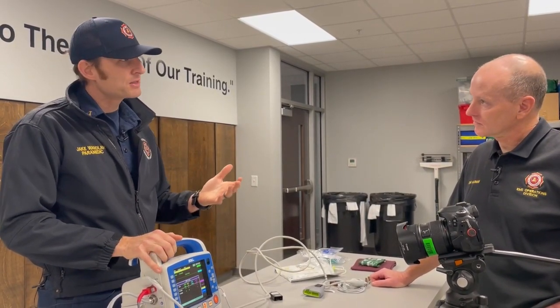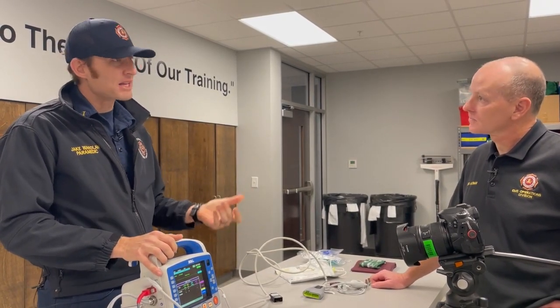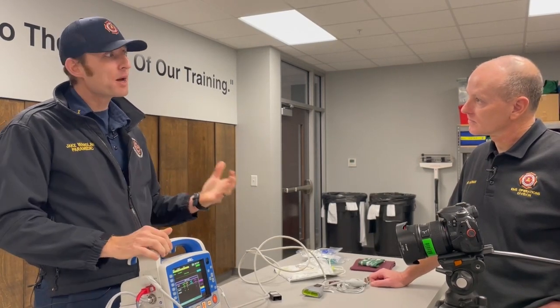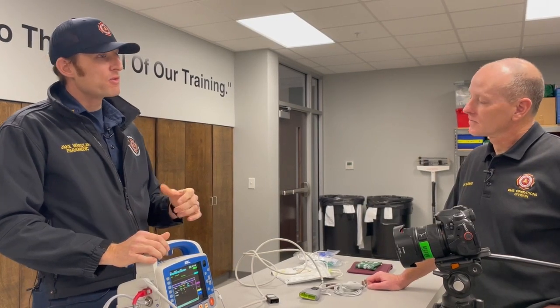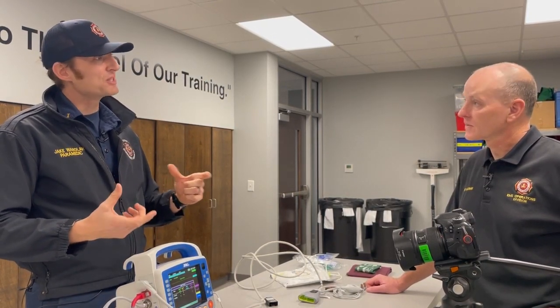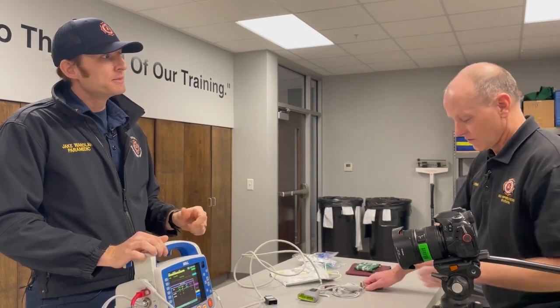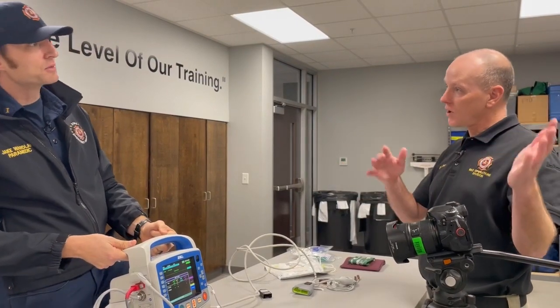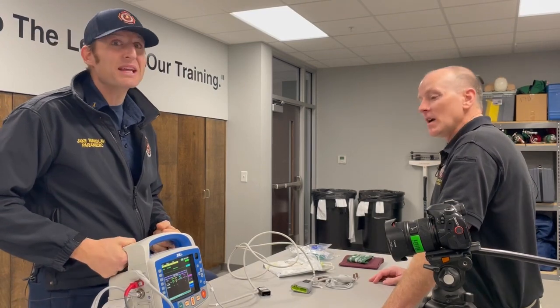It's perfect. The other benefit of it, if you're looking from a QA perspective, is that if you hit that button, it'll actually potentially take a photo of that moment. Again, that 12 seconds before, 12 seconds after, and when you upload it to your report, it'll actually capture it in your report. So if you've ever gone through Image Trend, gone through the monitor section and actually looked at images, if you don't hit that button, usually you just have maybe a 3-second snapshot. Correct. If you hit that camera, it's going to give you that full duration. We're talking 24 seconds. Yes. 12 before the incident and 12 after the incident. When you're looking at documentation, that's important. Yes. You need that perspective.